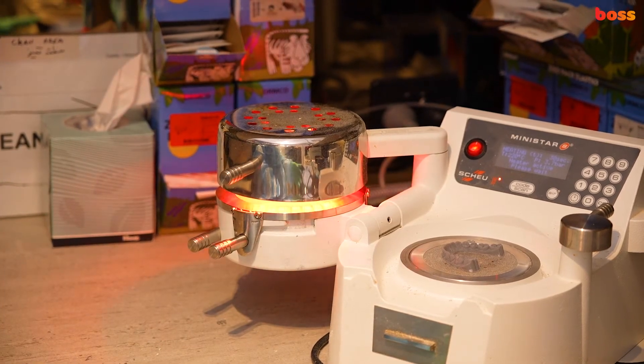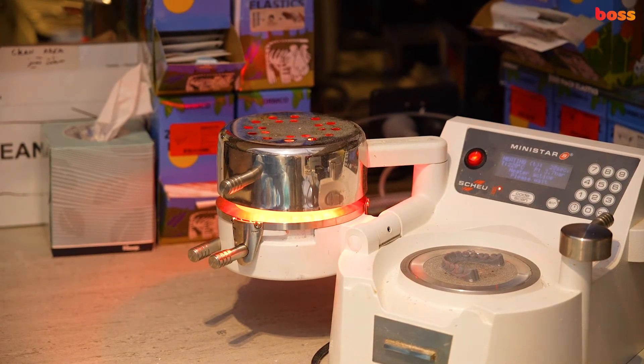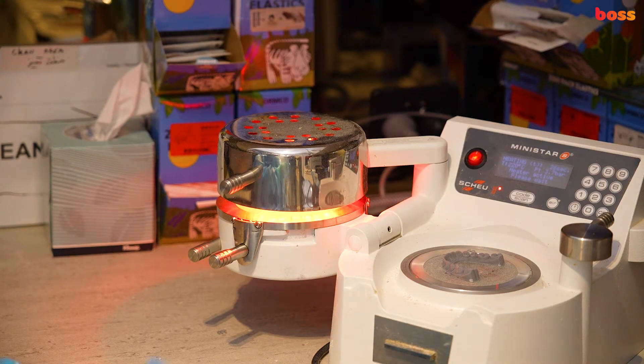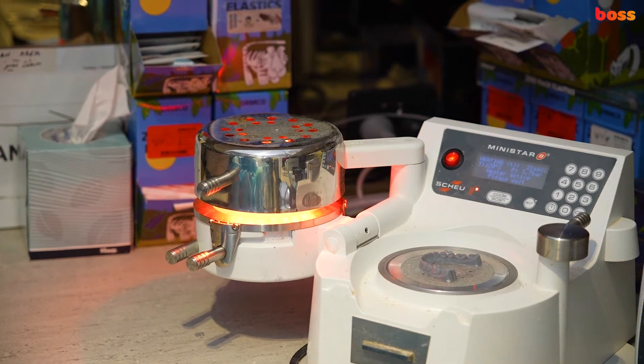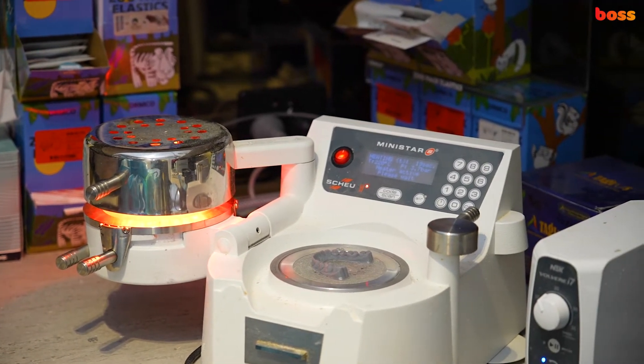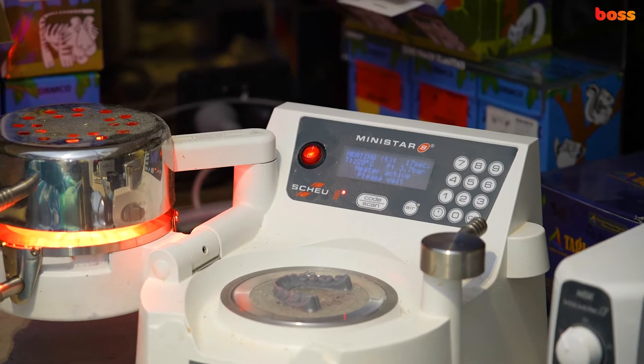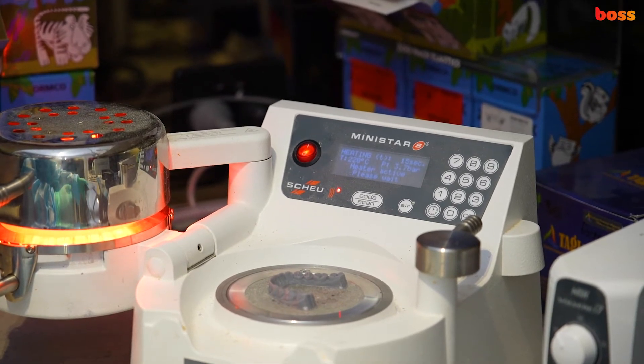So we select 30 seconds. As you can see, it's got to be done very quickly. It's very hot, so you have to be careful.